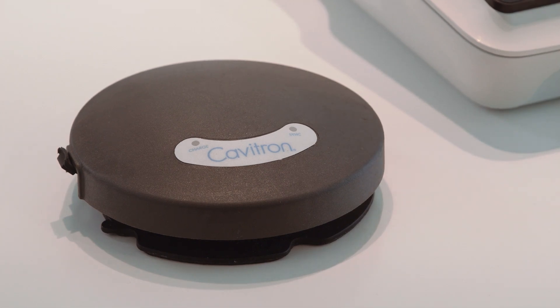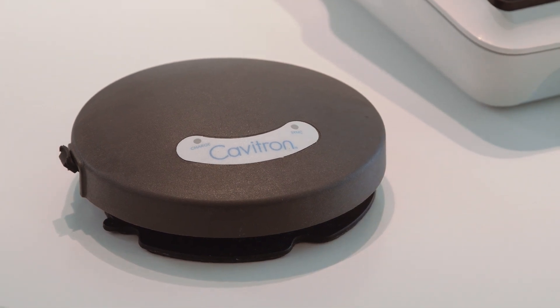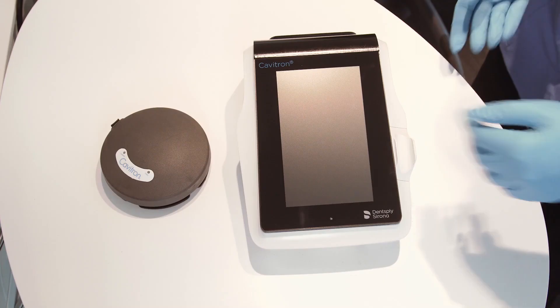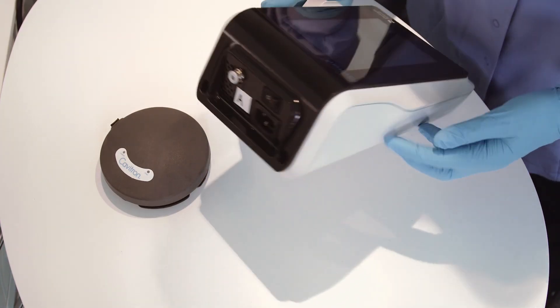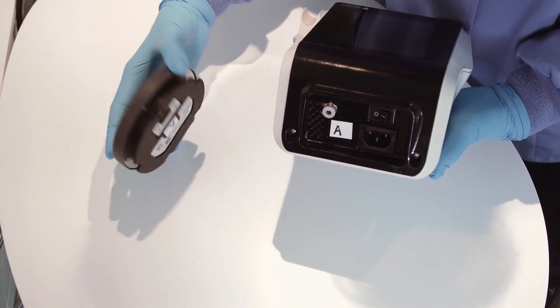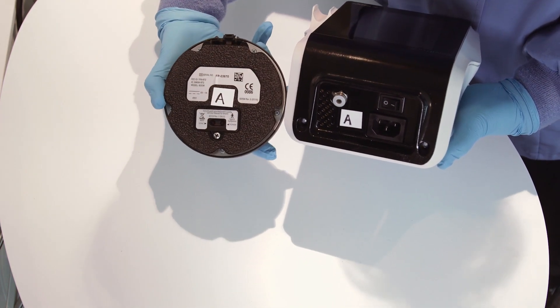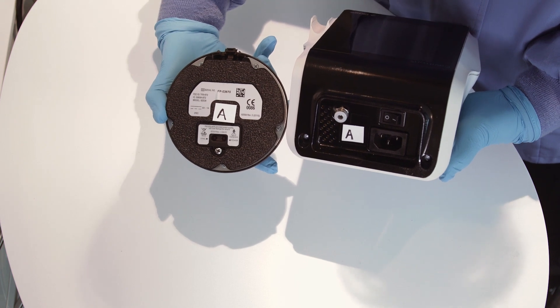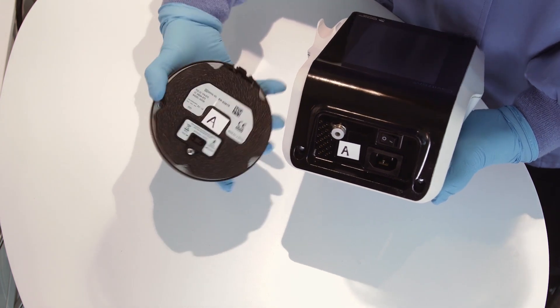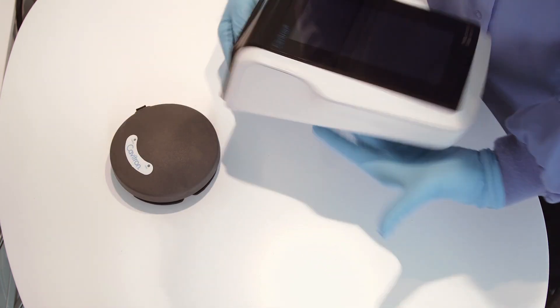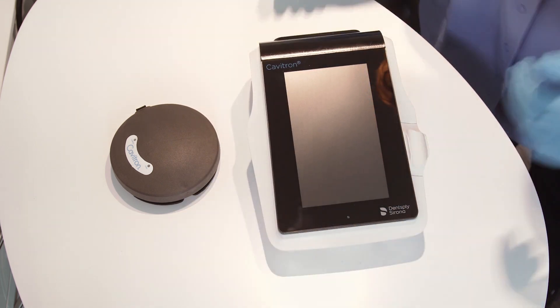The Cavitron 300 Series has been equipped with a tap-on technology wireless foot pedal, which was factory synchronized to operate with the system's base unit. If your office has more than one Cavitron Ultrasonic Scaling System with wireless foot pedals, Dentsply Sirona recommends that you mark the foot pedal and base unit for easy reference.